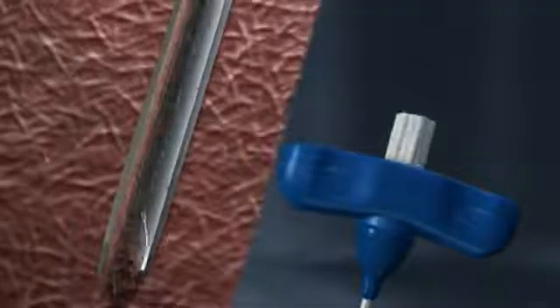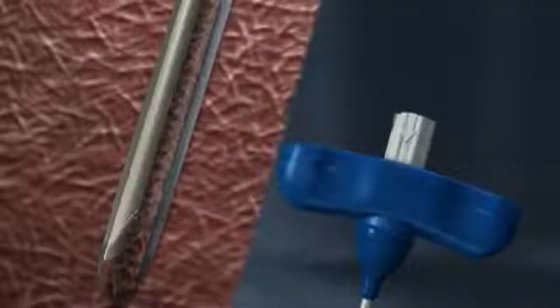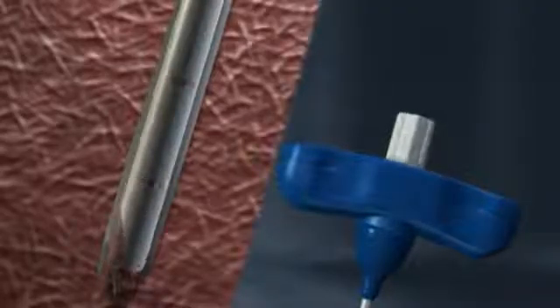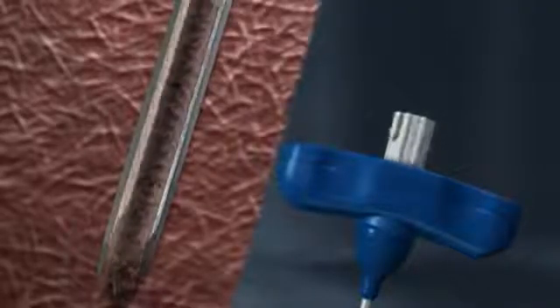That's because the beveled distal tip of the marrow acquisition cradle doesn't extend to the tip of the crown cannula, where crushed artifact is most likely to occur. After a single rotation of the marrow acquisition cradle, a non-fragmented trephine is cut from the medullary cavity.